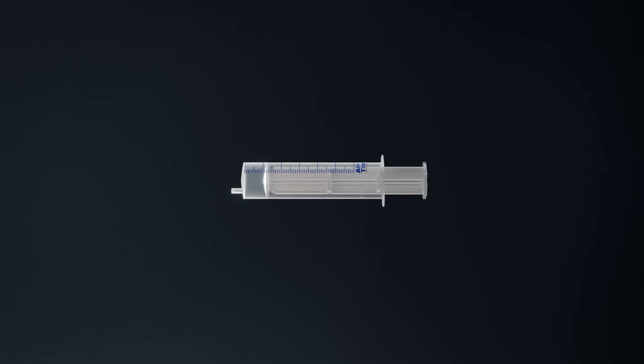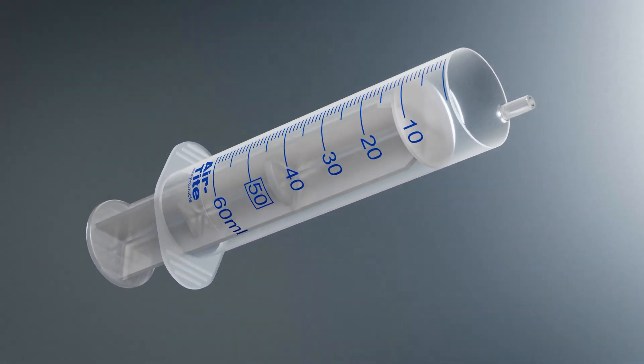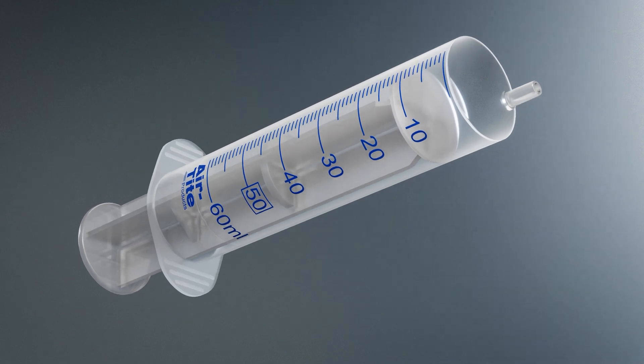These syringes are graduated to 60 milliliters to hold large volumes of fluid. For dosing accuracy, dark blue graduation marks are clearly visible every milliliter on the polypropylene barrel.